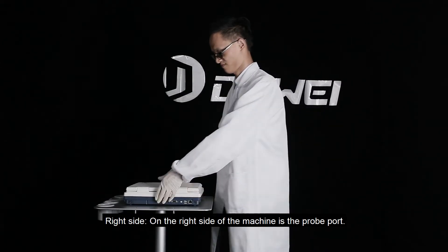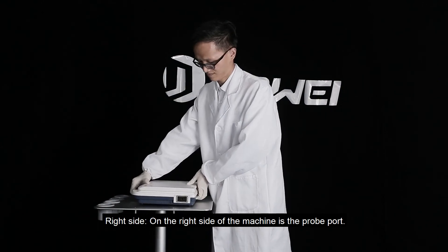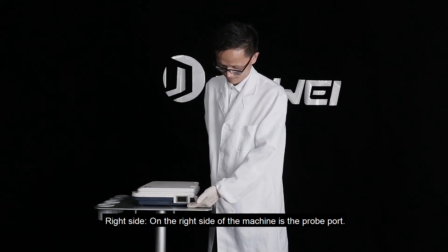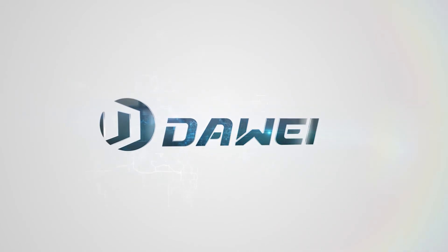Right side: on the right side of the machine is the probe port.